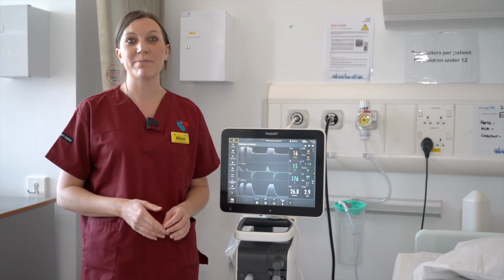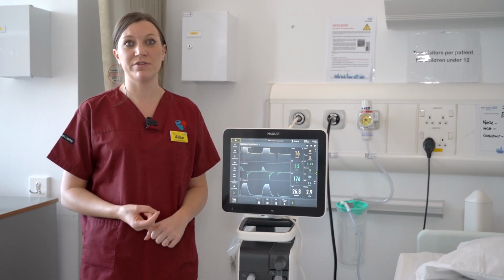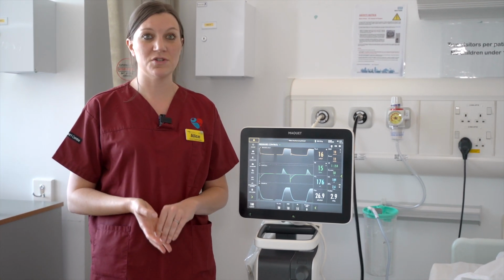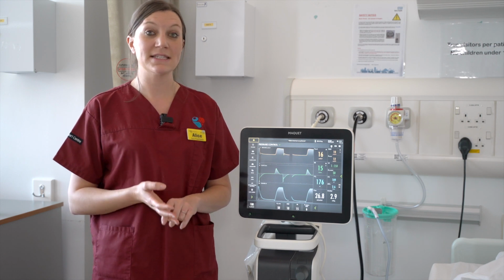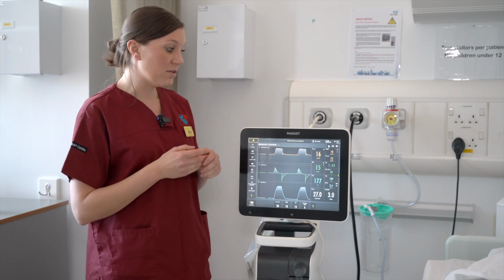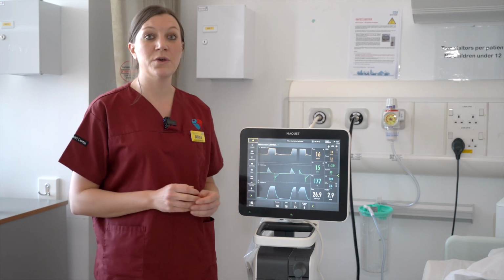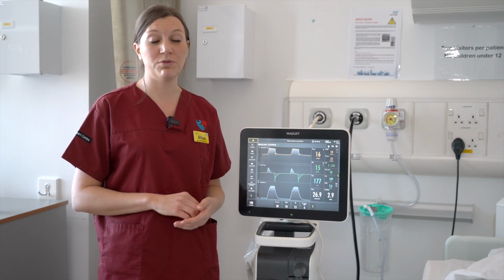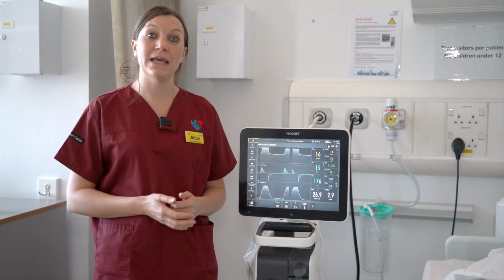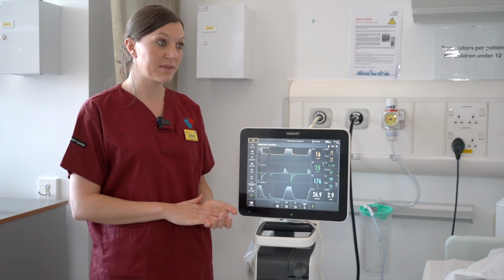So just to recap, in terms of the main points of your ventilation, a key thing that we want to ensure is lung protection and a lung protective ventilation strategy. So that is ensuring that the tidal volume is at 6 mils per kilo of predicted body weight, that your peak airway pressure remains less than 30, and that you can identify the problem and call for help from the ICU team as needed, and also ensure that your PEEP remains high and in line with your adequate FiO2.